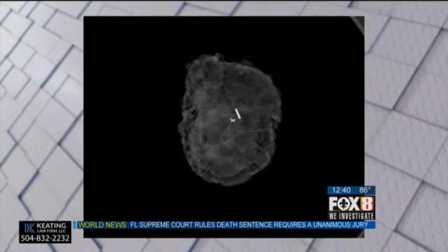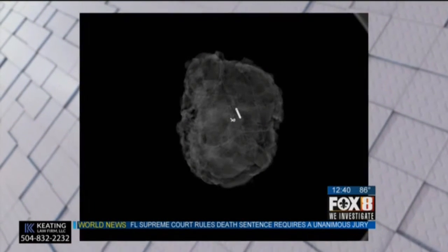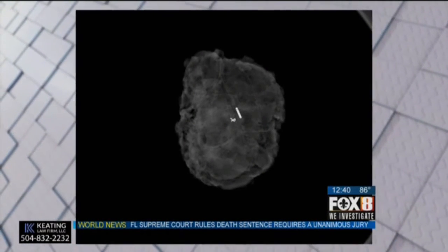That's amazing. How do you get that seed into the patient? The seed is placed with a tiny little needle that goes directly into the cancer. We've got some still images that you sent. Explain what they're seeing and how this device works.